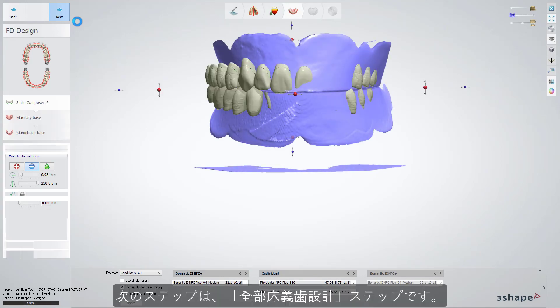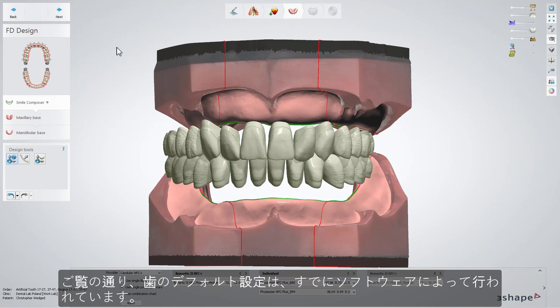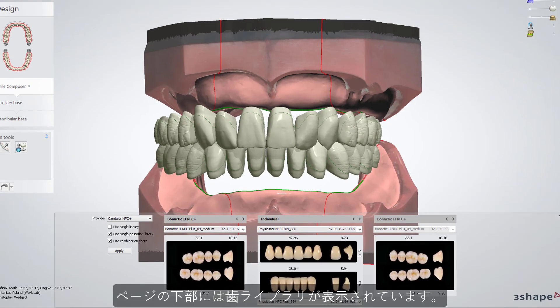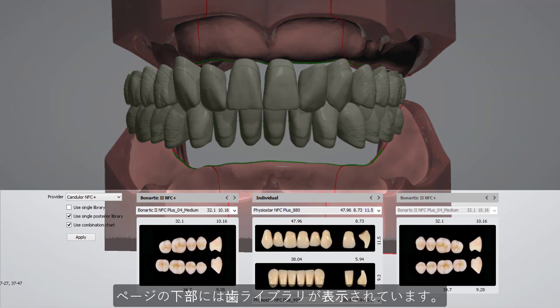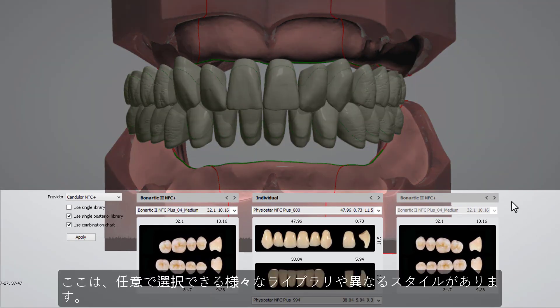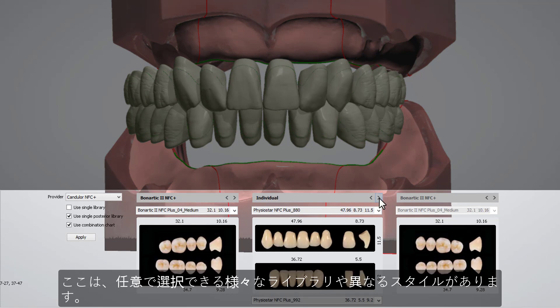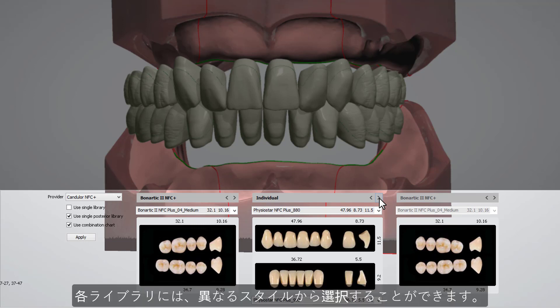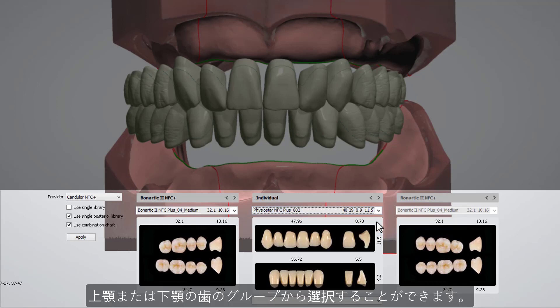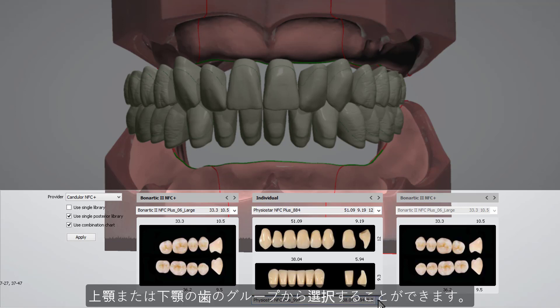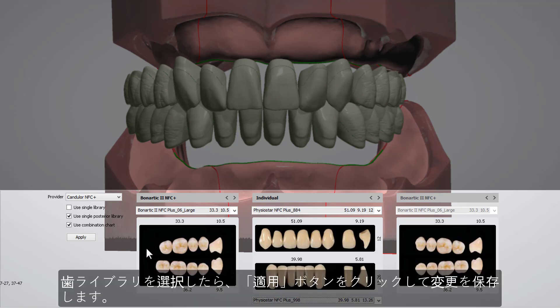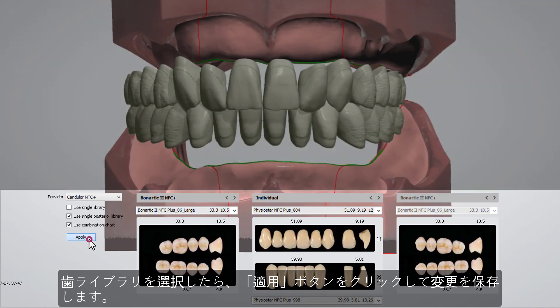Further on is the FD design step. As you can see, a default setup of the teeth is already made by the software. On the bottom of the page, you've got a big view showing the preview from teeth libraries. We have different libraries and different styles here from which you can choose the one you prefer. For each of the libraries, you have a proposition for a different style, with groups of teeth either for an upper or a lower jaw. After you choose the library you prefer, click the Apply button to save the changes.